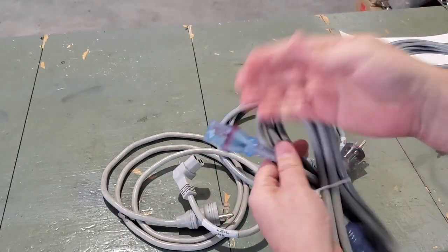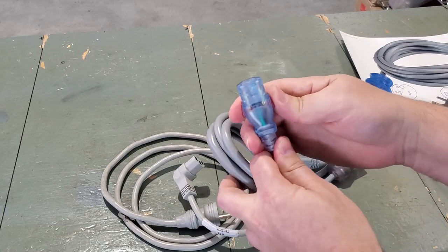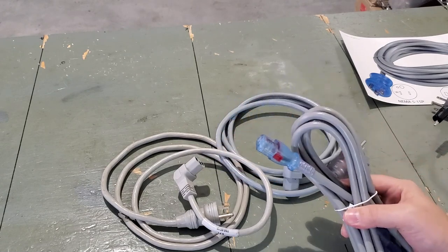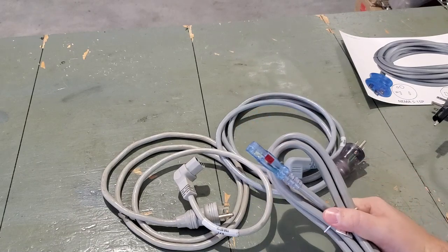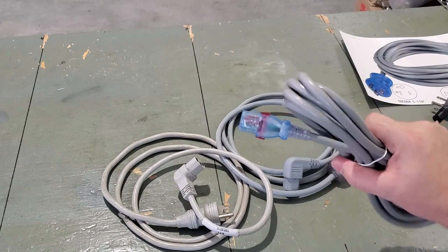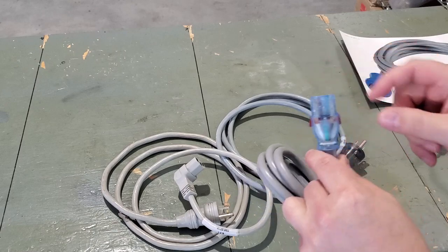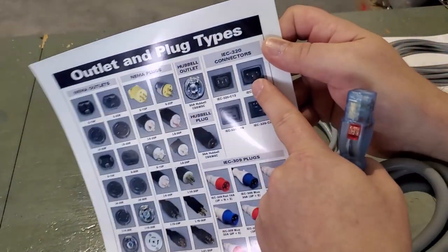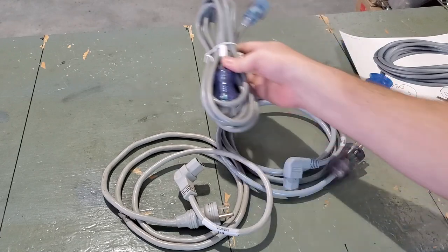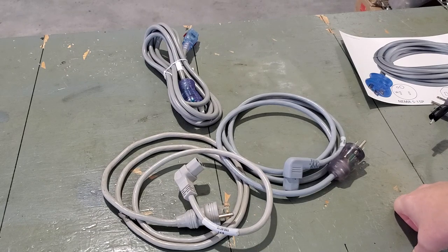This special one here — I actually found it on our warehouse shelf because we sell them — is called an IEC locking. See how it's got these little tabs? There are certain medical devices where the power cord should never be pulled out. An example might be a patient monitor in a patient room where cleaning crew, patients, or family keep unplugging it. This style is much less likely to come unplugged because in order to pull it out of the IEC connector, you have to squeeze both of the red tabs on the sides to release the cable. These are found in operating rooms where you definitely don't want it coming unplugged in the middle of a surgery.